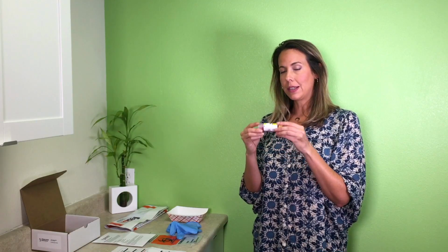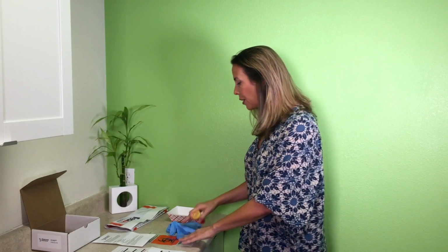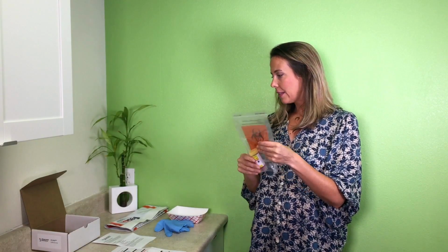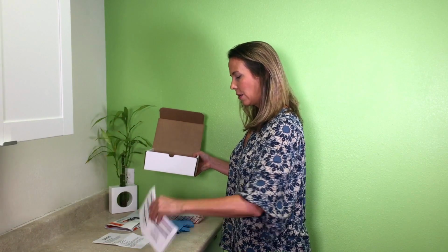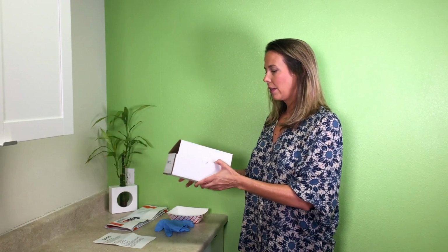Now, make sure that the vial is labeled with your name, date of birth, and date of collection. That's really important. They can't process it unless the vial is labeled, okay? So make sure it's labeled. You're going to go ahead and put this back in the Ziploc. And then this goes in the box along with your requisition form, okay? And this is what's going to be sent out.